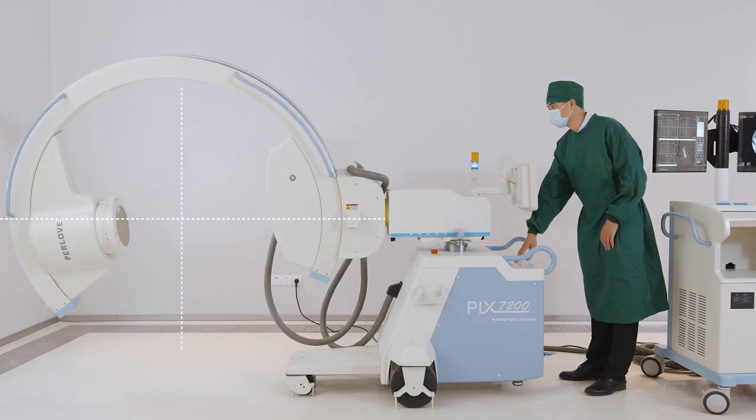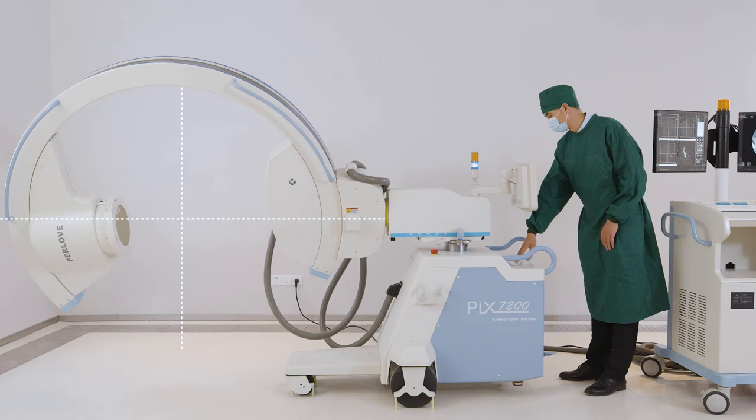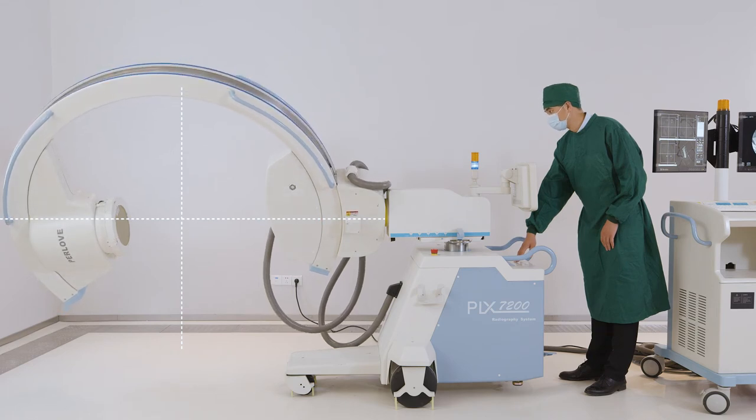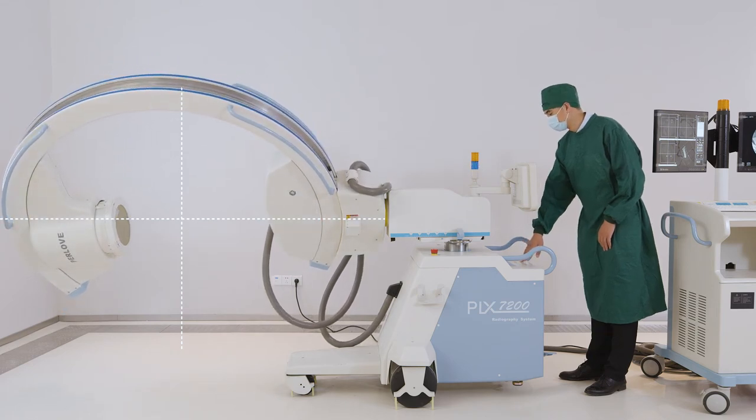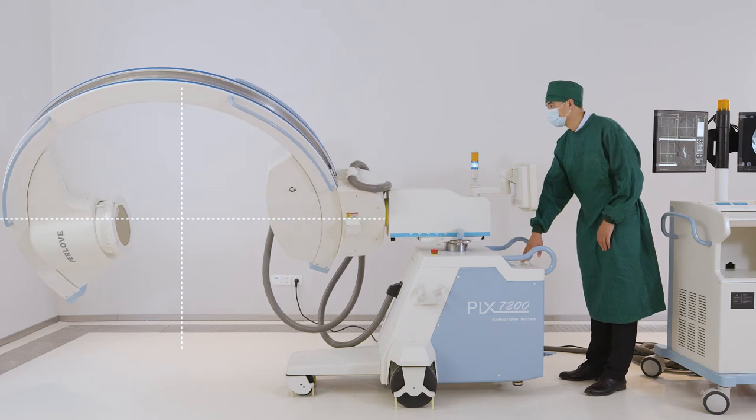In addition, to improve the efficiency of surgery, it can also reduce unnecessary repositioning exposure and reduce the radiation dose of doctors and patients.